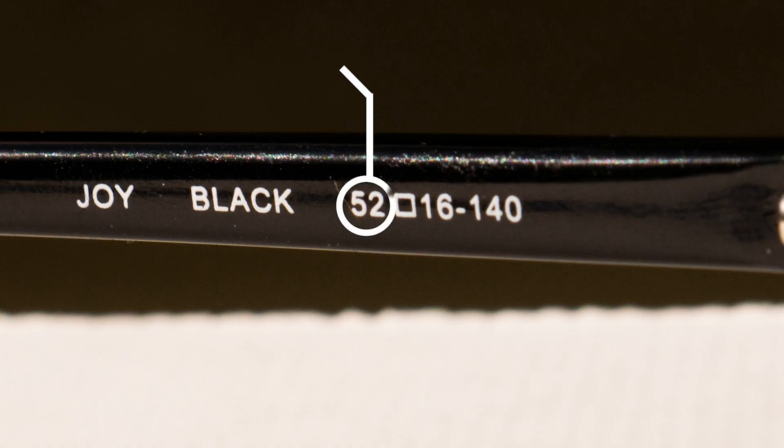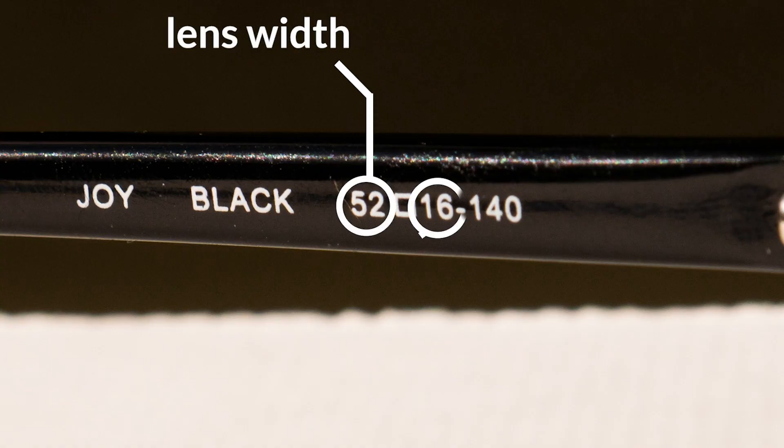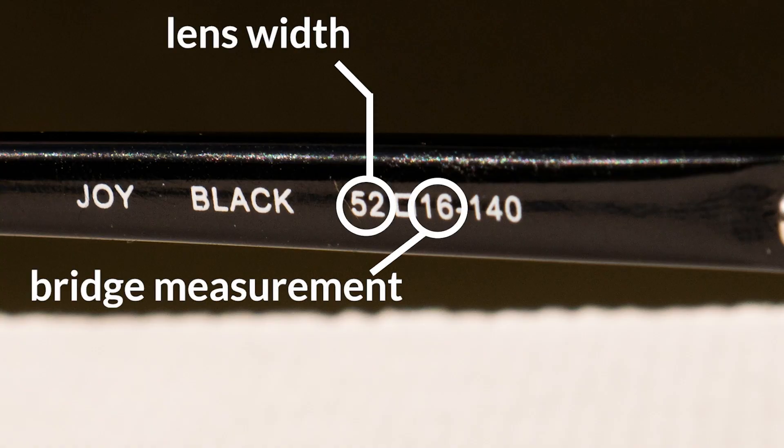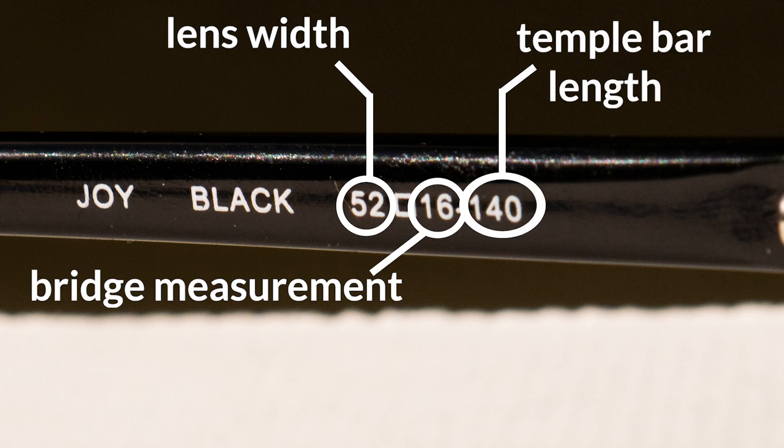If you take a look at the inside of your current glasses, you may notice three sets of numbers. Those numbers are your frame's measurements. The first number is your lens width, the second number is the bridge measurement, and the third number is the temple bar length.